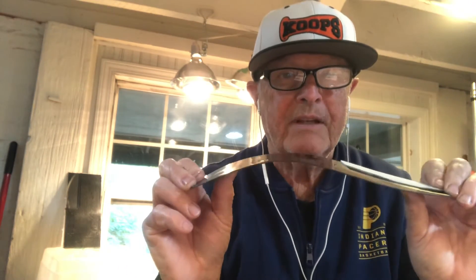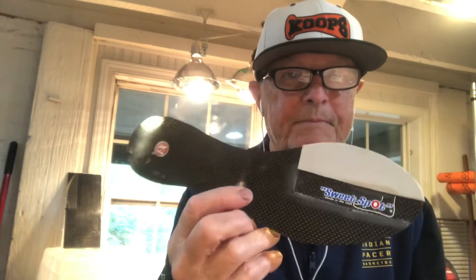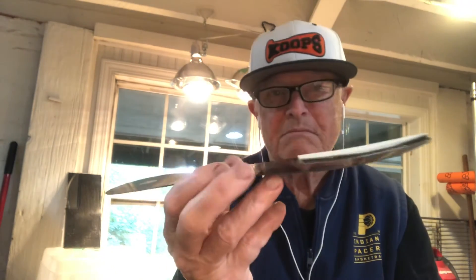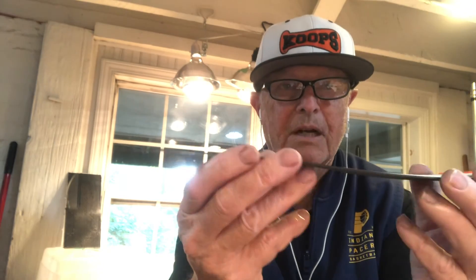It's on one of my tri-flex blades, so it's flexible, very lightweight, and at the mid-foot I put a little extra power at the second met for stability. It weighs about an ounce and about thirty-second of an inch thick rocker shape.